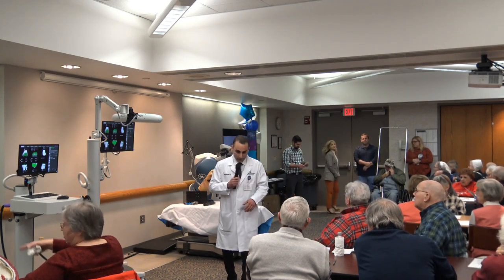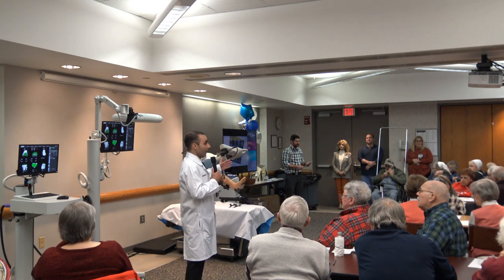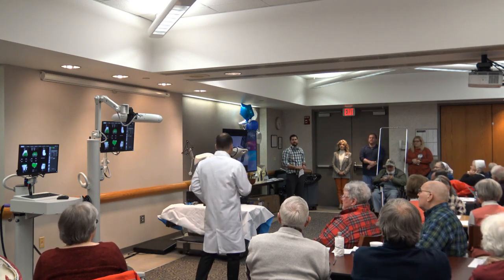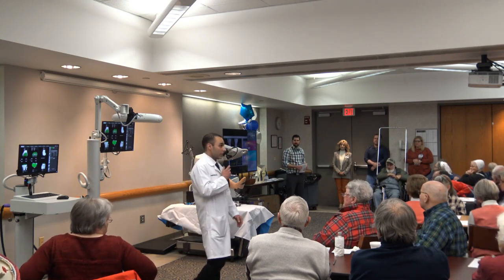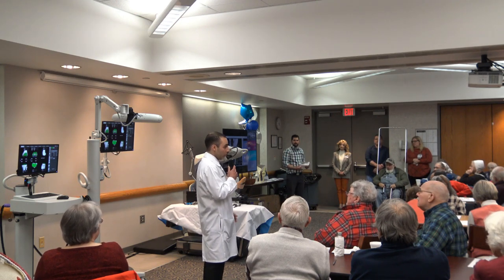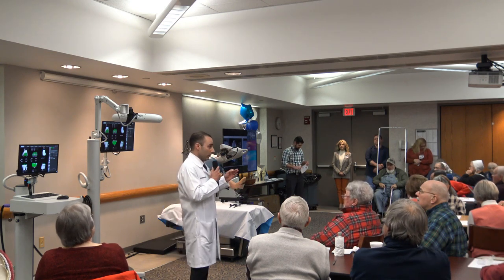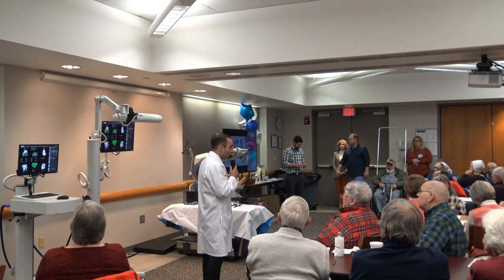Hopefully we can explain things so you don't have any questions, but we're going to leave quite a bit of time at the end for questions. Worcester Community Hospital has purchased the entire application of the robot, which includes total hip replacement, total knee replacement, and partial knee replacement — which can be a unicompartmental or a bicompartmental replacement.